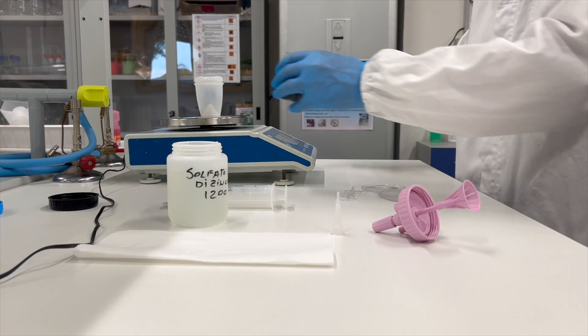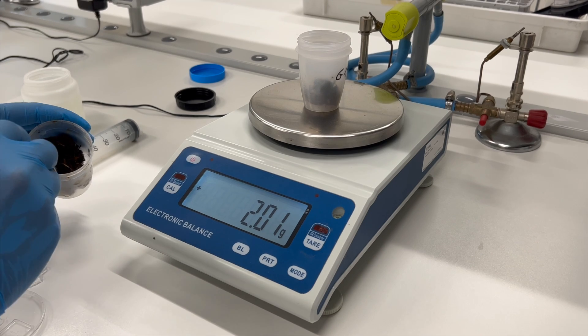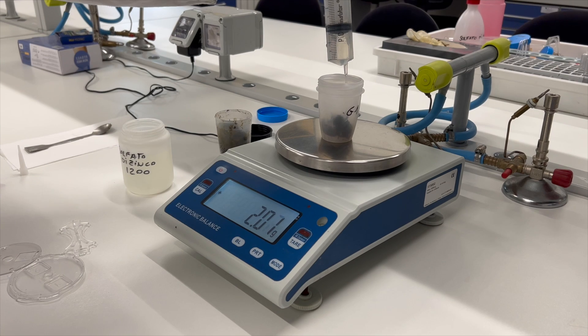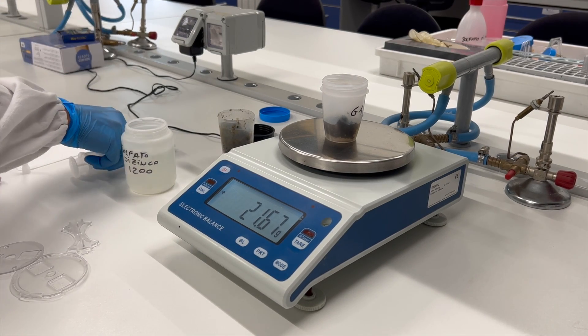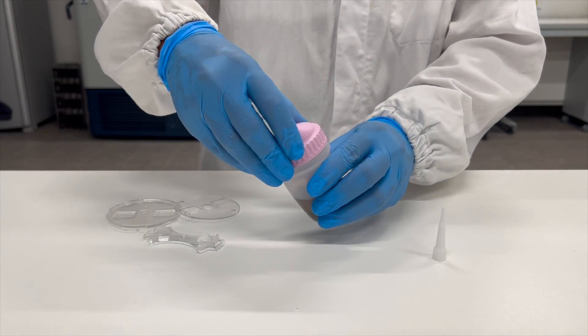Here we perform the MINI FLOTAC technique on a dog fecal sample. Pour 18 ml of liquid into the FIL FLOTAC cup, then fill and level off the FIL FLOTAC collecting cone with faeces. The collecting cone holds 2 grams of faeces, which equates to a dilution ratio of 1 to 10 — 2 grams of faeces plus 18 ml of flotation solution. Homogenize and filter the sample using the FIL FLOTAC.